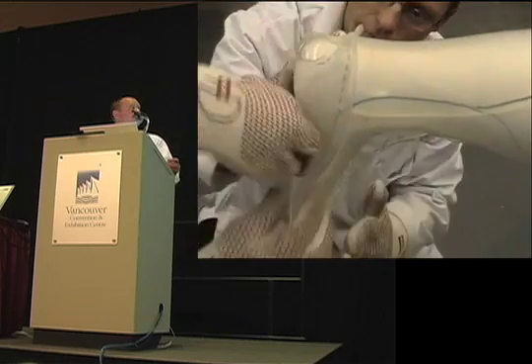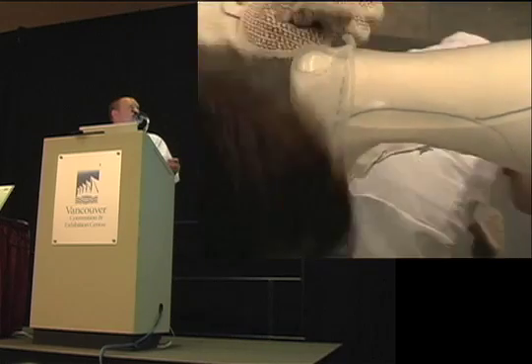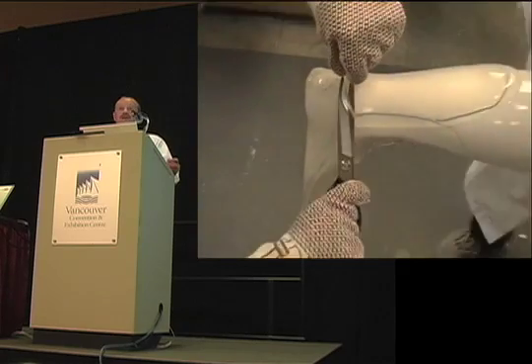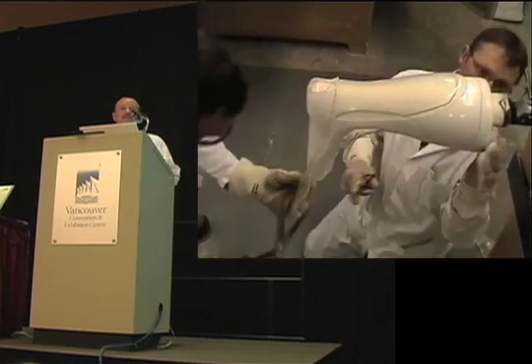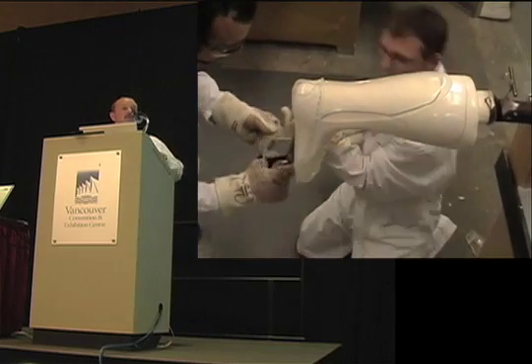You want a real tight bond between your plastic. Cut them off. You can see the trim lines have been darkened, so at this point you can take a wax marker and highlight them. It's especially critical if you have a transfer on your device so you can see your final trim lines.